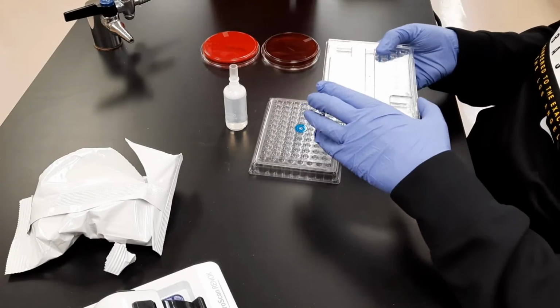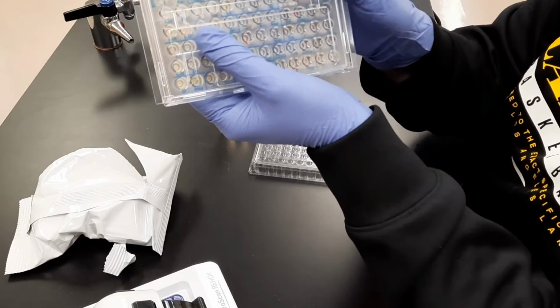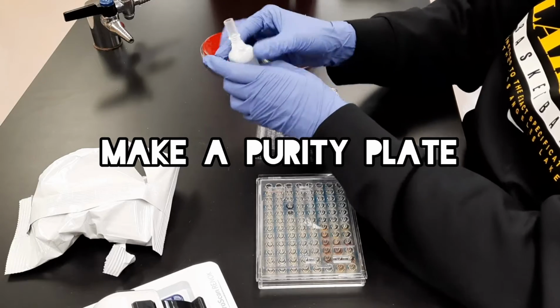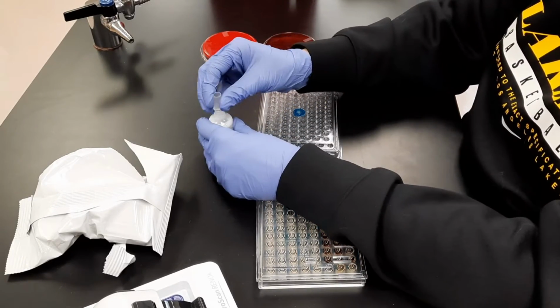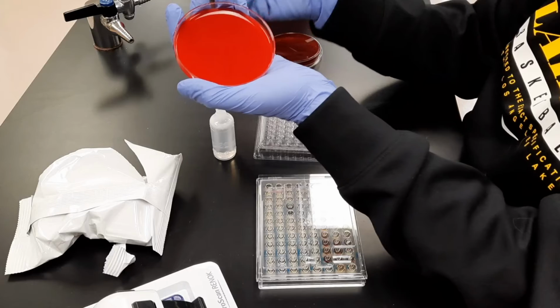Make sure to place the cover on to avoid contamination. A purity plate must be made to ensure that only one organism is being tested.